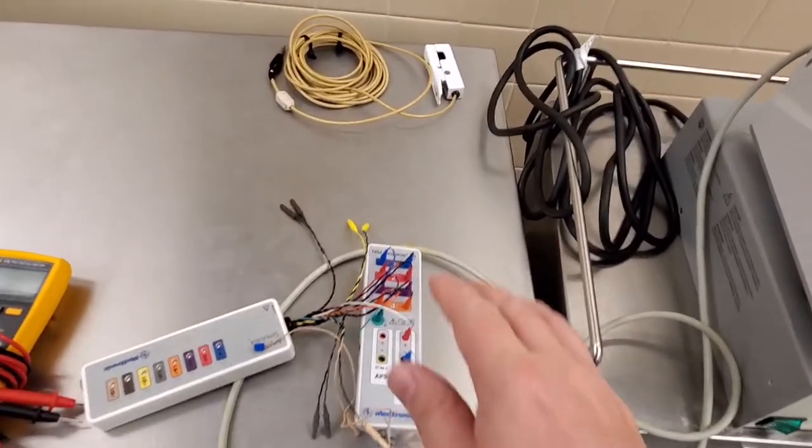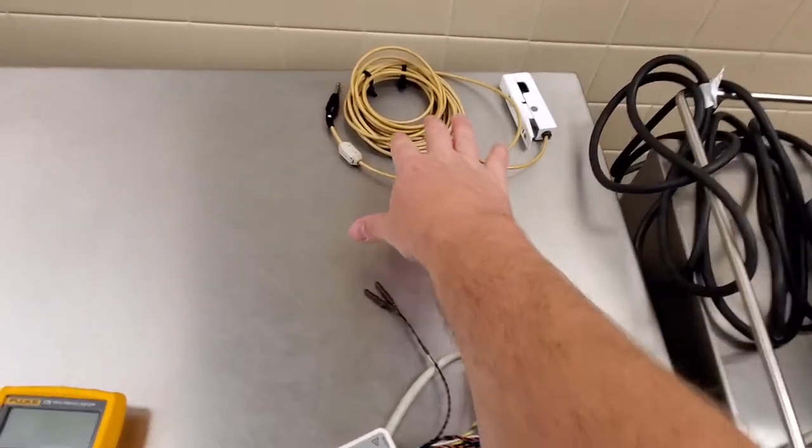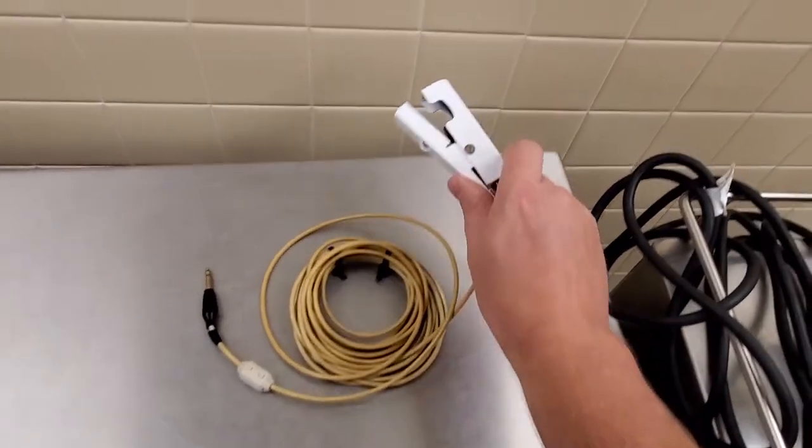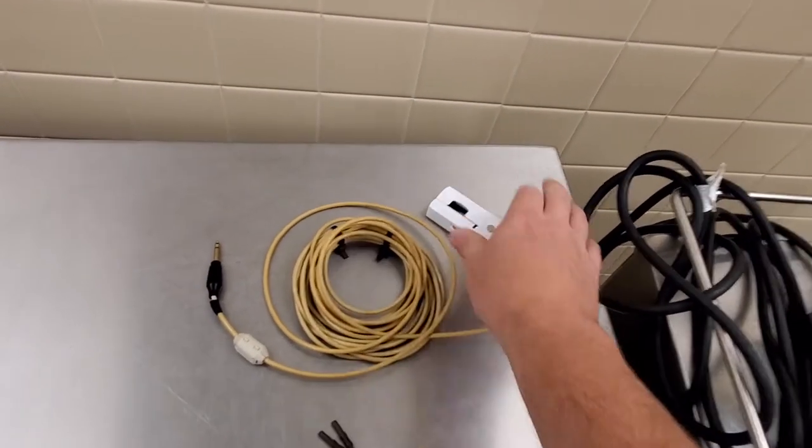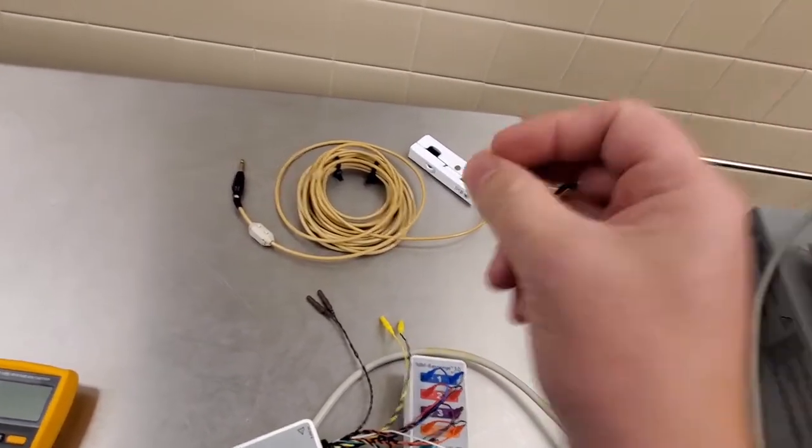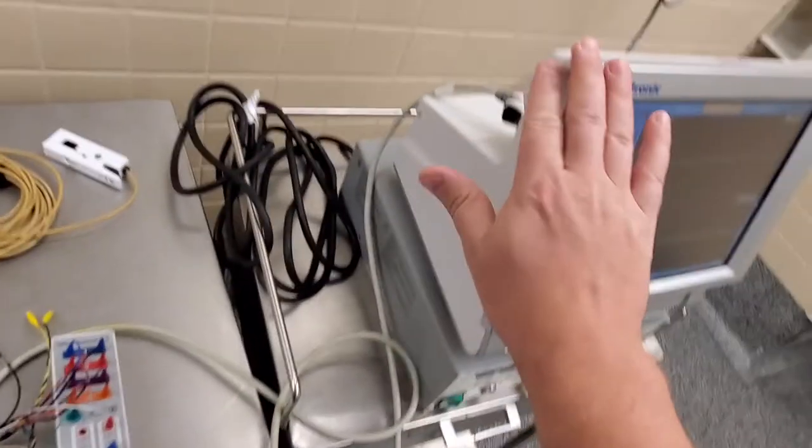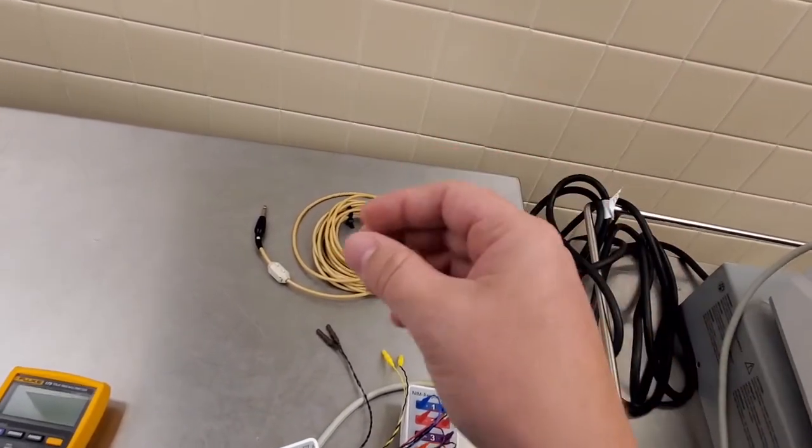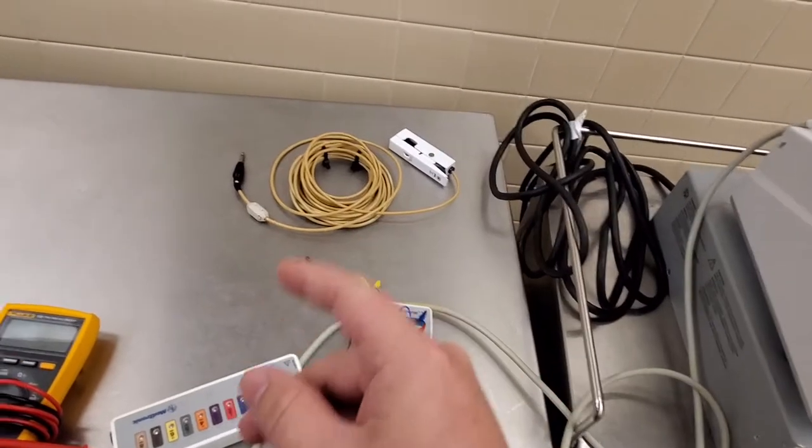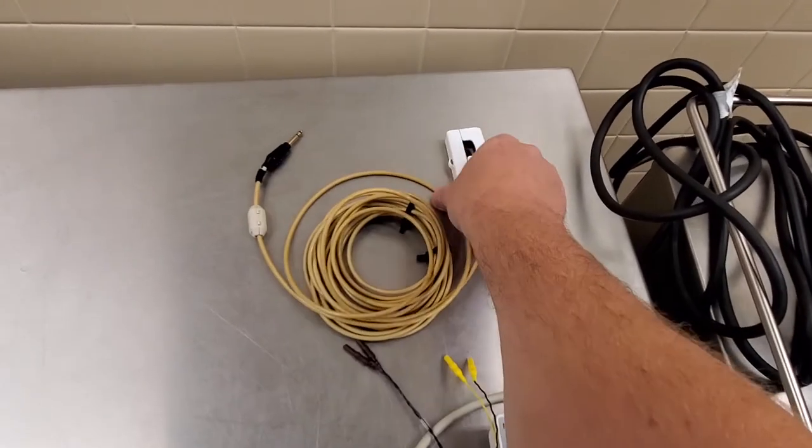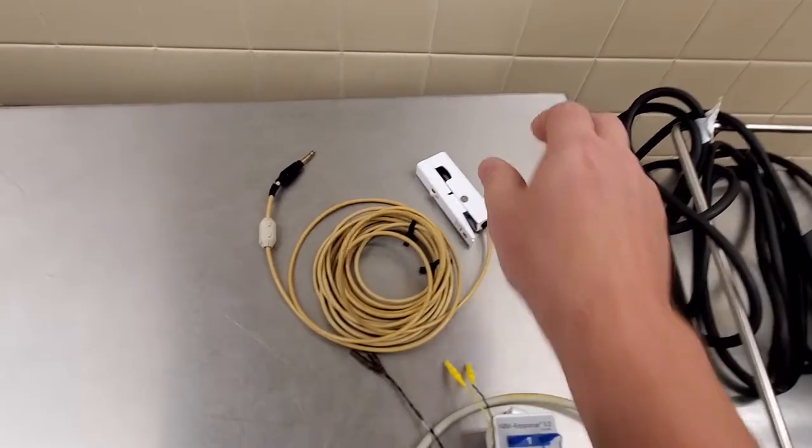So this guy here also comes with this pickup. Now this pickup, it's like a standard induction clamp and it will fit over your ESU lead. So while the doctor's cutting with the ESU, it shuts this guy off, shuts the monitoring off anyway, so that it's not going absolutely crazy and driving the doctor crazy.